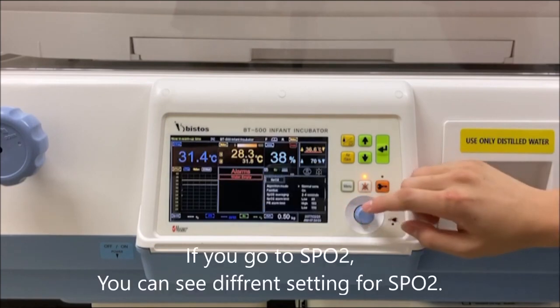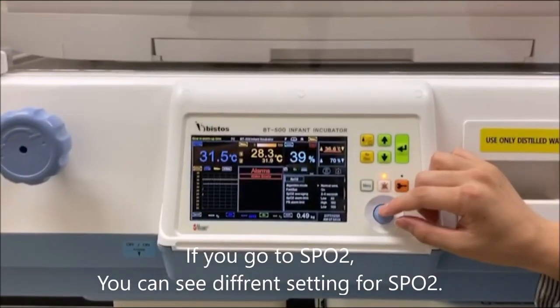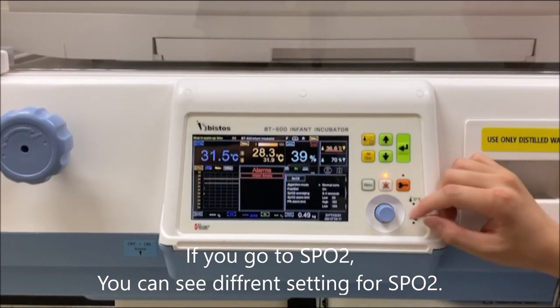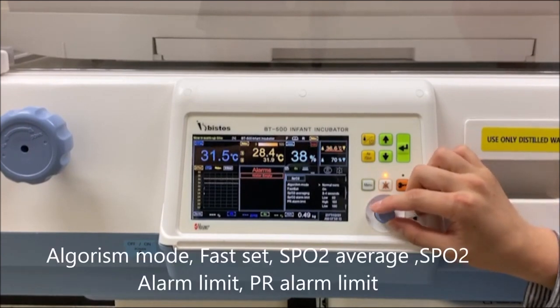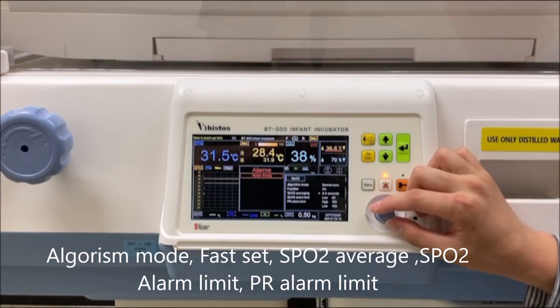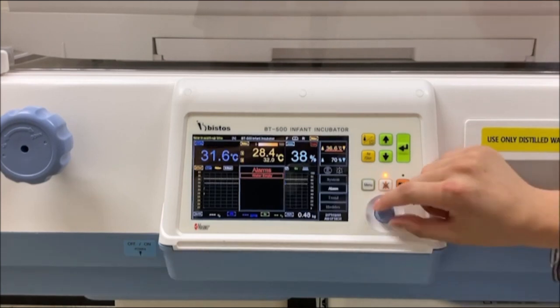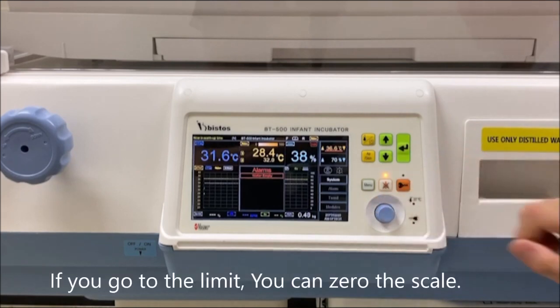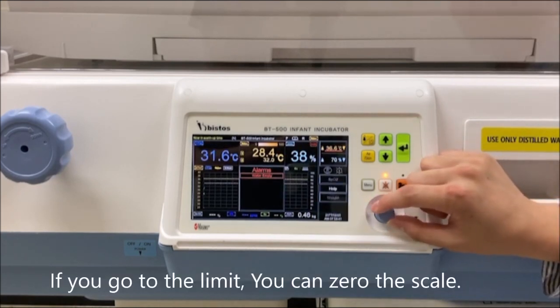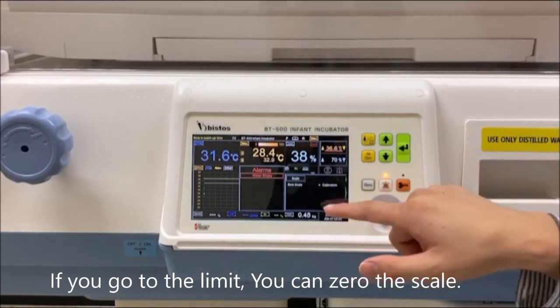If you go to the SPO2, you can see different settings for the SPO2: algorithm mode, fast set, SPO2 averaging, SPO2 alarm limit, and PR alarm limit. If you go to the weight, you can zero the scale.